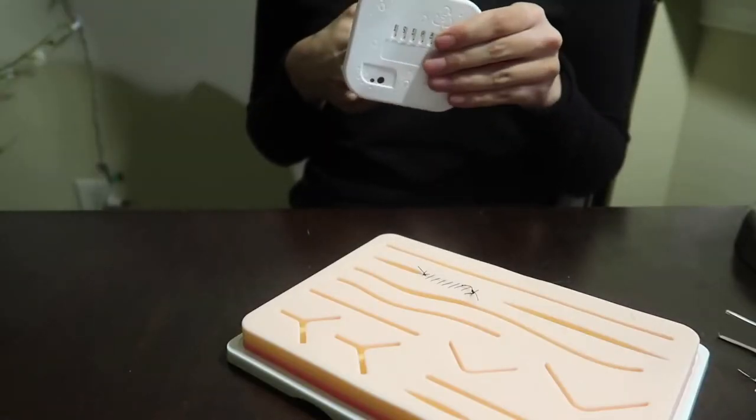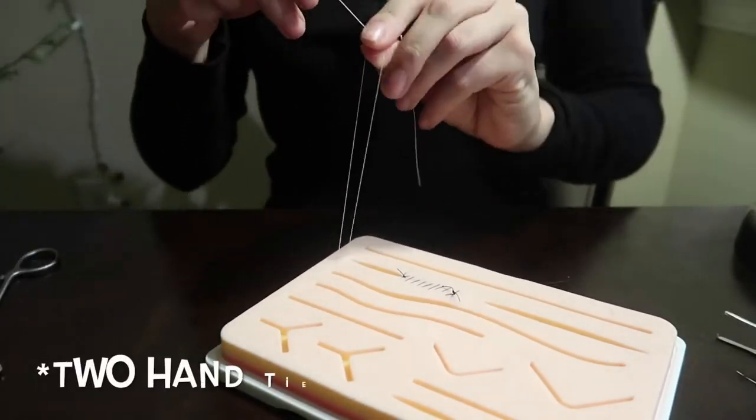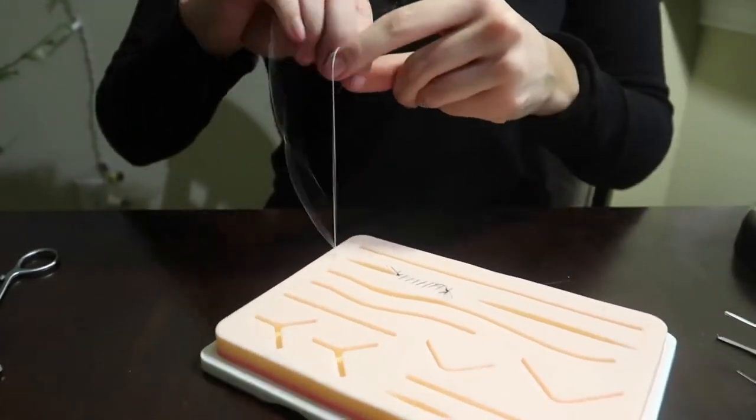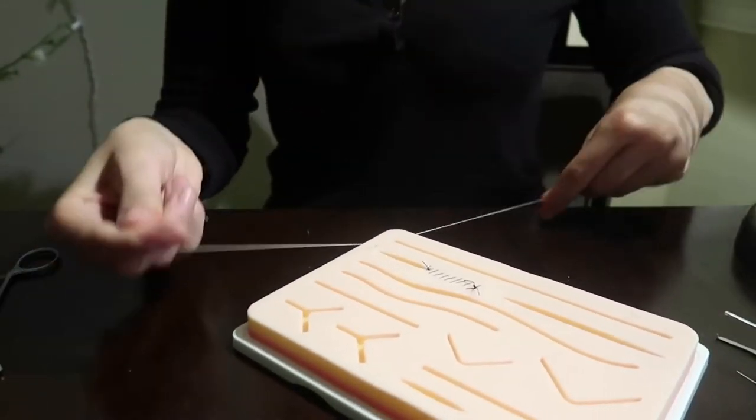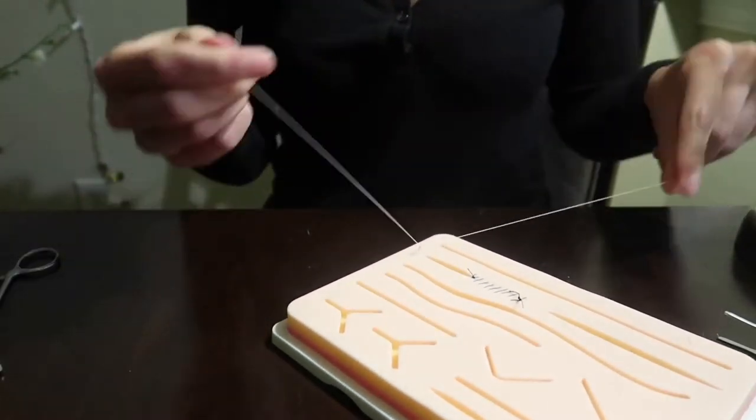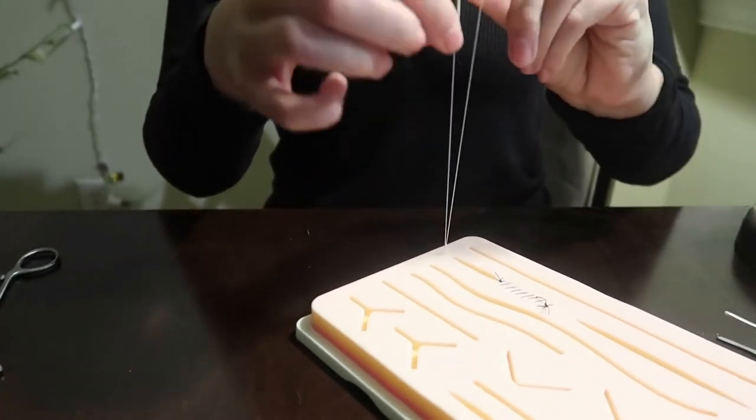Another really important tool you can practice with your suture kit is your hand ties. Here is a one-hand tie, and they have videos in the package that you can use, so you don't have to look at rookies like me do it. You can look at an actual physician teach you how to do the basic knots and sutures you would need as a surgeon.